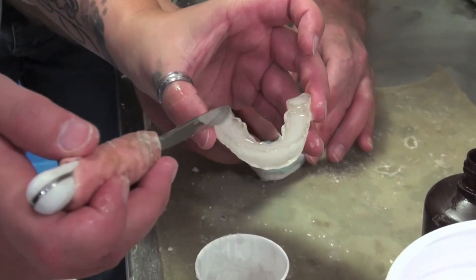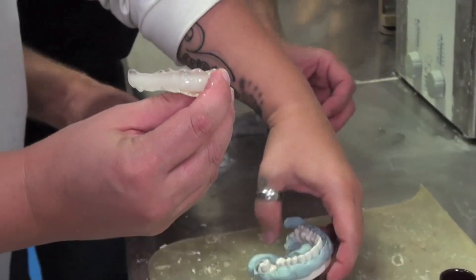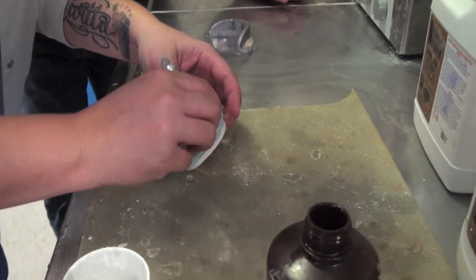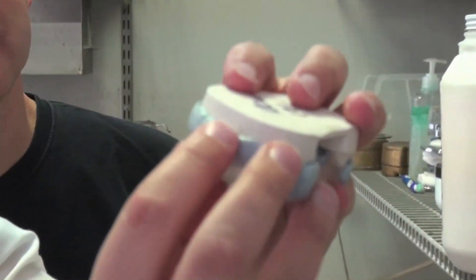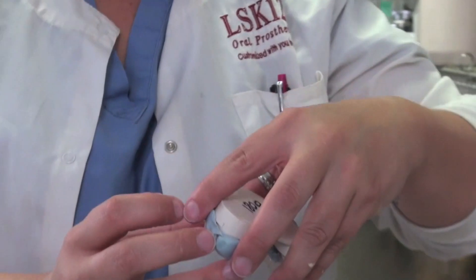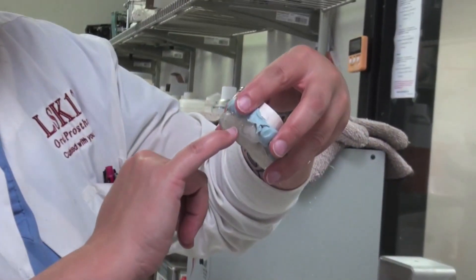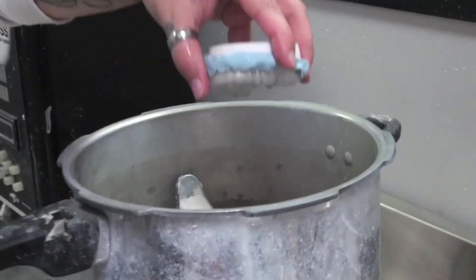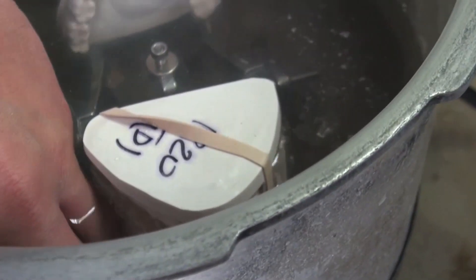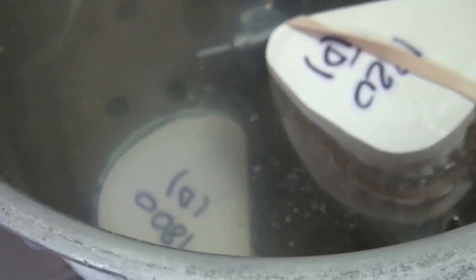Now I need to push it in this way — I'll hold it and push it. I'm actually going to process this face down so you can see the teeth are in there and all layers are there. I could see it filled in all the teeth and all those spaces — it was a little runnier. I'm going to process this face down so it doesn't move. You don't need any rubber band — because it'll push too hard against the putty and it'll change my occlusion. So cook.